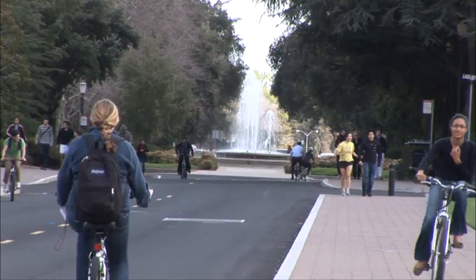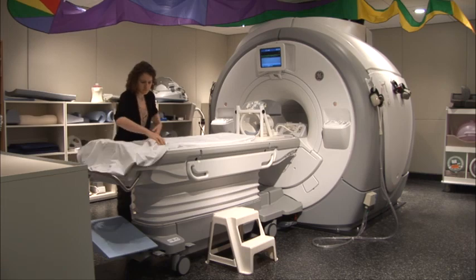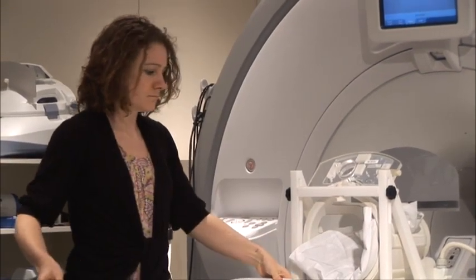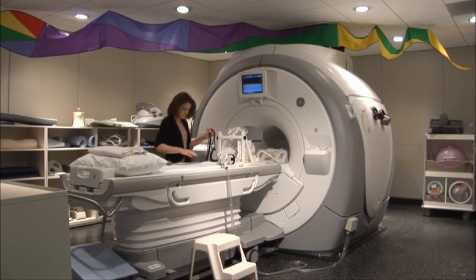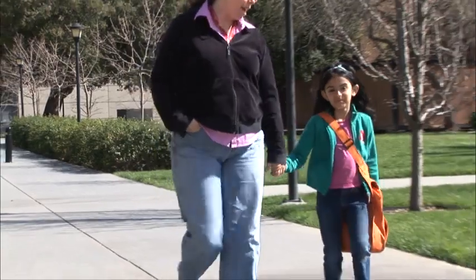Hi there and welcome to our study. We'll be asking to take some pictures of your brain using an MRI scanner, which is like a special camera that uses magnets and kind of looks like a big donut. It takes a picture of whatever is in the middle of the donut, and so you'll be lying on a bed inside of it. This video will help you get ready for your MRI.